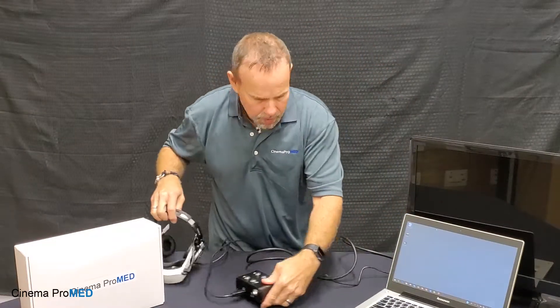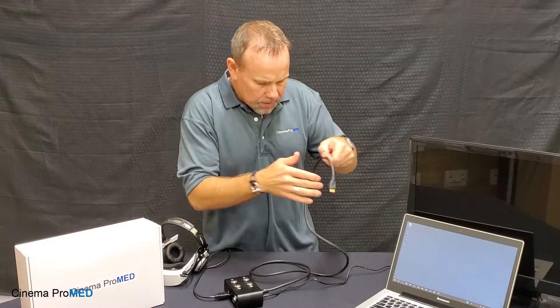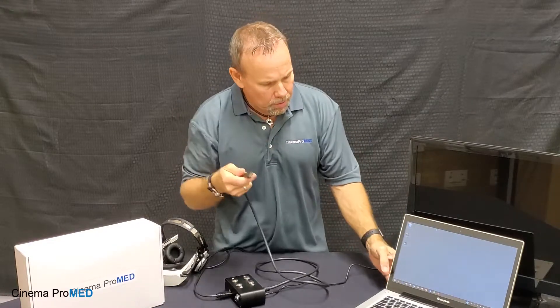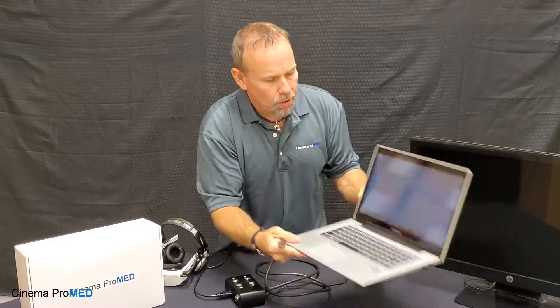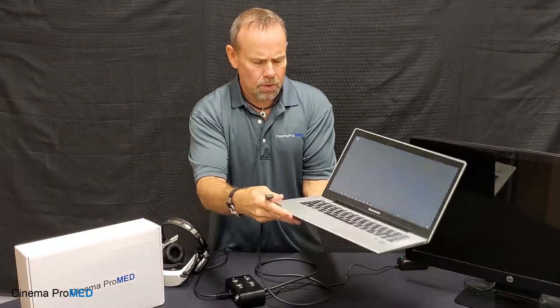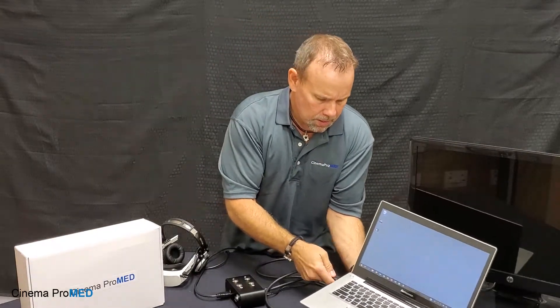The second step is to take the other end of the cable, find the HDMI port on your computer — on this one it's on the side right here — and plug it in.